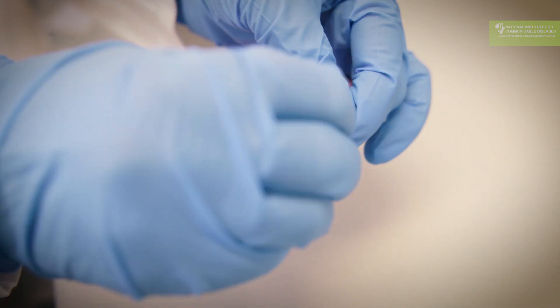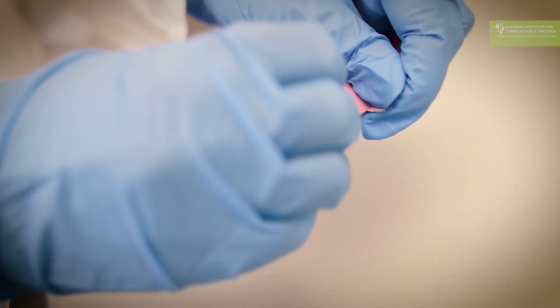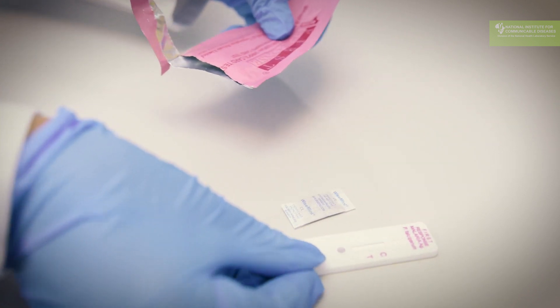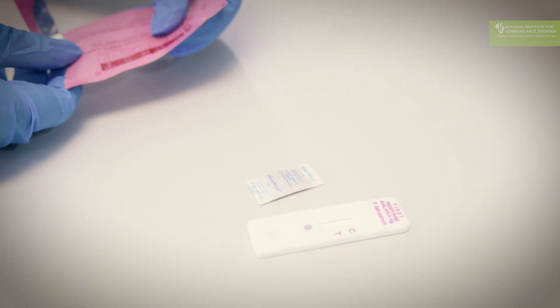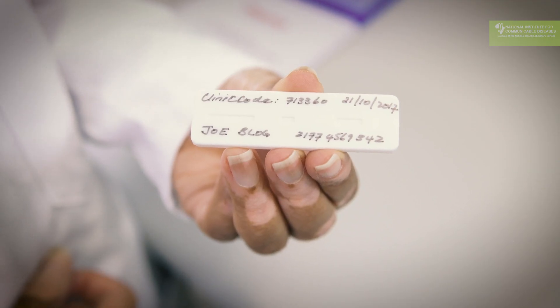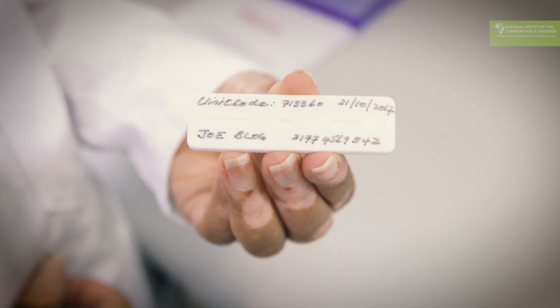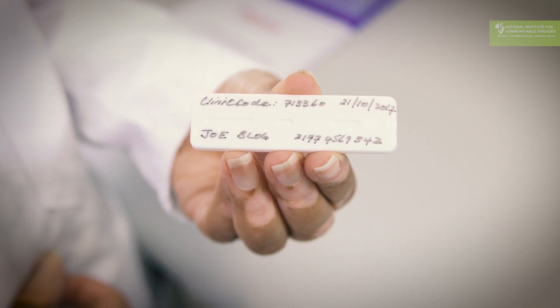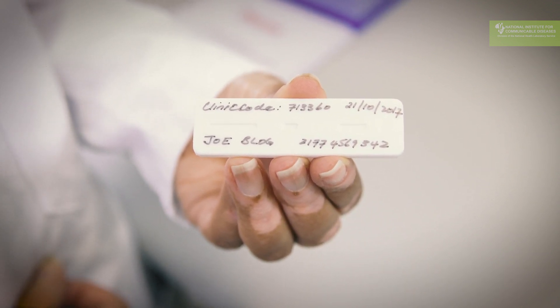Once you start the test, you have to make sure that some patient information is written on the test before you begin. Always include the patient's name, the date that the test was done, as well as the clinic name or clinic code. This ensures that the patient and the patient result can be linked to each other.